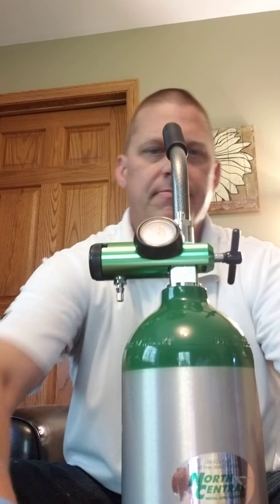As you know, you have your oxygen wrench and it's just lefty-loosey to open it up. I've already got set up my liter flow, and out comes oxygen. When you're done, you can turn it off — I like to close my tanks when I'm all done using them.